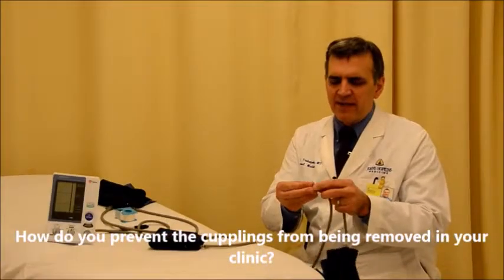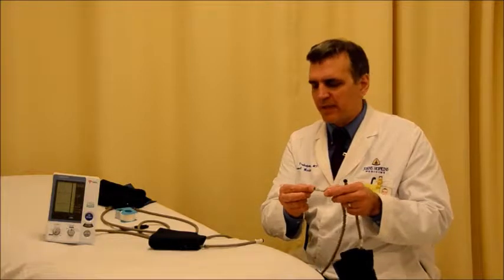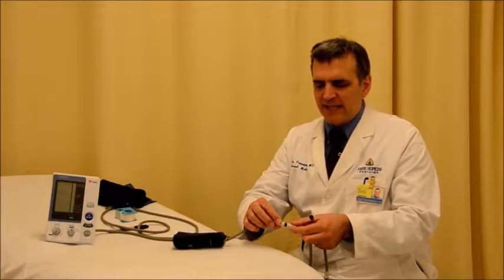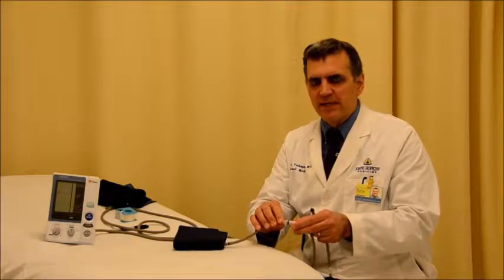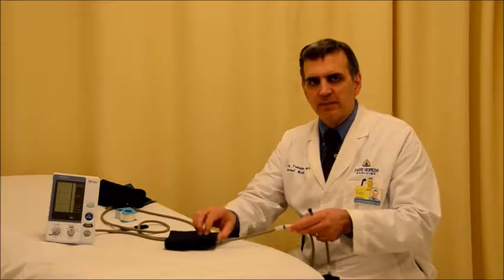What I've done is I've actually taped the black plastic coupling to the gray tubing. This way it's not easy to remove it and it reminds the people who use these cuffs to leave the coupling attached to the tubing.